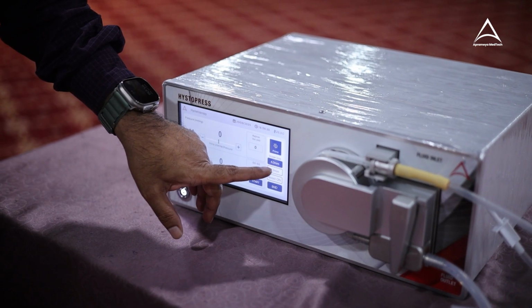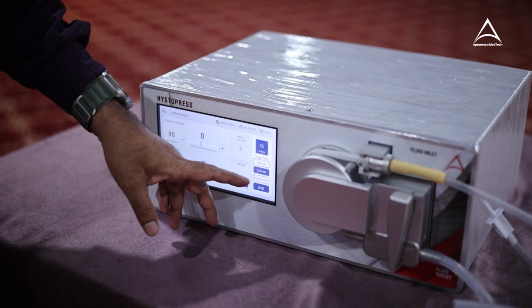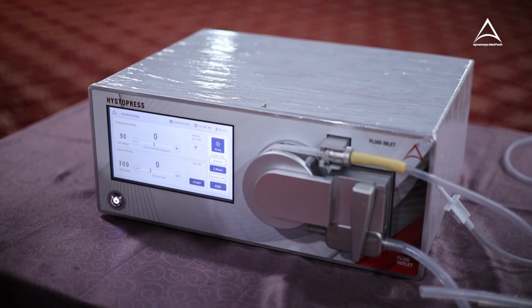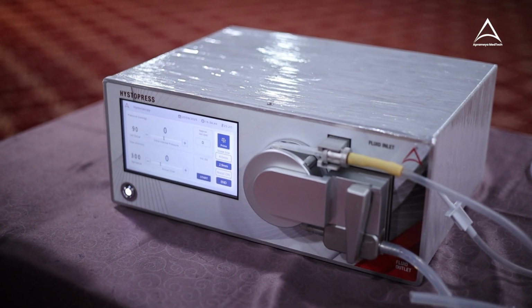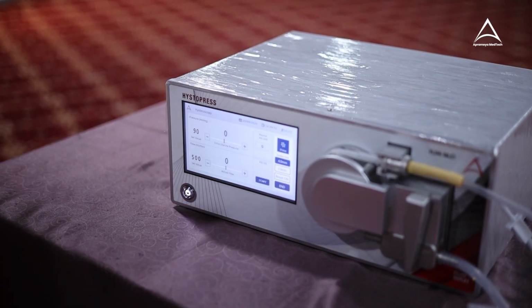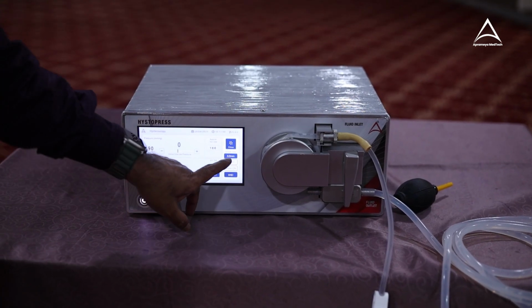User has this facility to select sheath size or a scope size, which is 4 mm or 2.9 mm. When you select this, you are actually informing the machine that the diameter of the scope or sheath used is 2.9 mm. So machine accordingly selects the program inside and behaves in that manner. So this is intelligent programming, we can say. It helps machine to give you accurate results all the time. This screen will come. Now you select the desired scope size, whether you will be using a 2.9 mm scope or a 4 mm scope. Now I selected 4 mm.